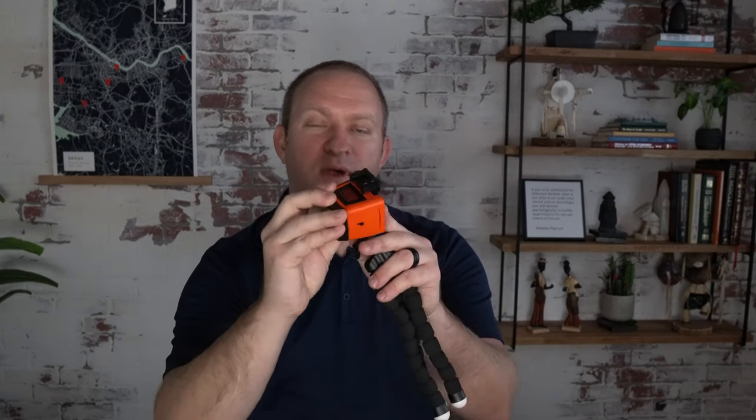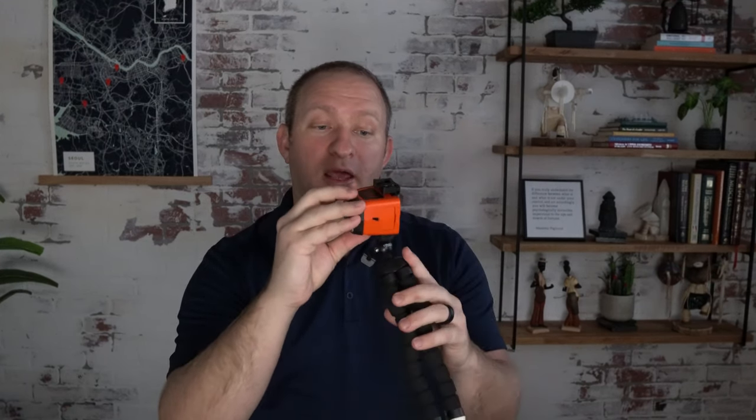Simply take your laser level, stick it into the phone mount that's attached to your tripod, and you are basically ready to go. I like to add at least a rubber band on here just to hold it a little bit more secure. And of course, if you want it to be much more secure and more permanent, you can always use a zip tie to keep it nice and snug on there — like if you're going to leave it on a patient's walker for them to use when you're not there, go ahead and use a zip tie. That'll keep it nice and snug for you.